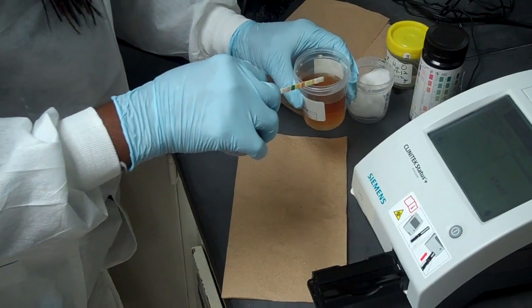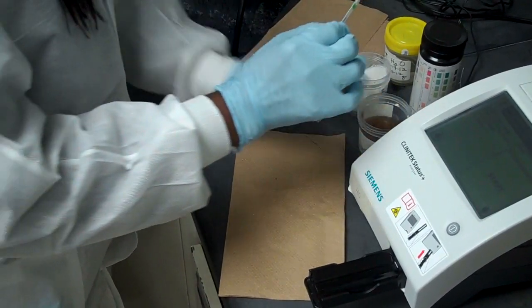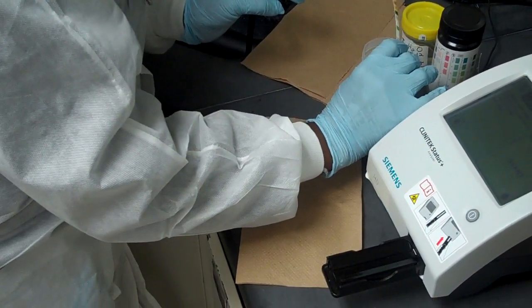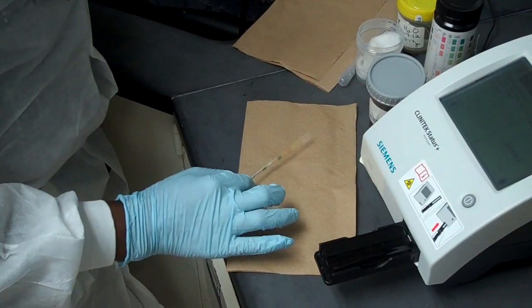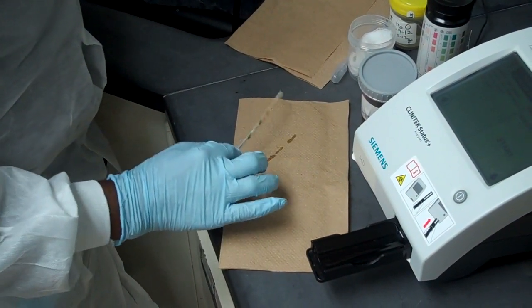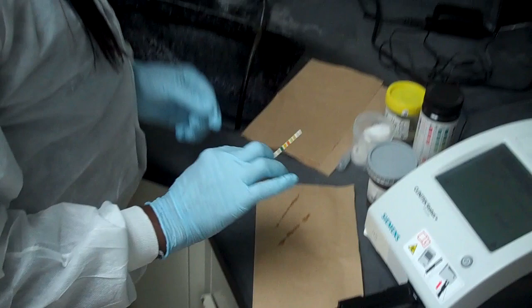You blot a little bit. You blot that twice. You blot that twice on a paper towel.